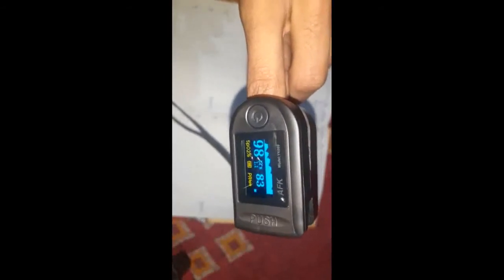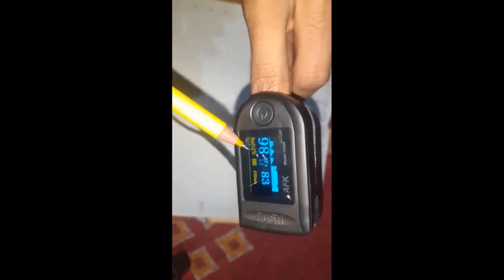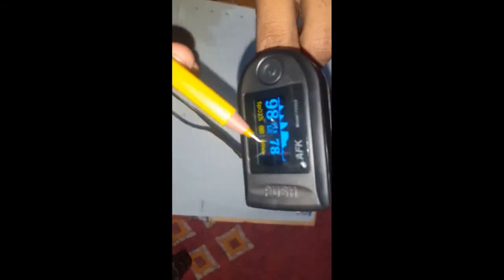You will see the SpO2, which stands for saturation of oxygen level. You can also see PRBPM, pulse rate beats per minute.